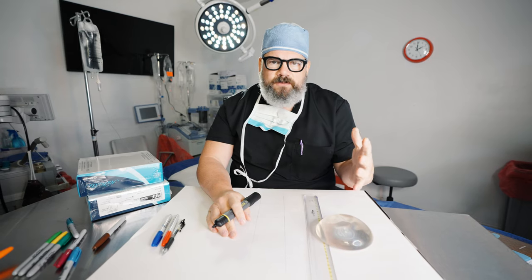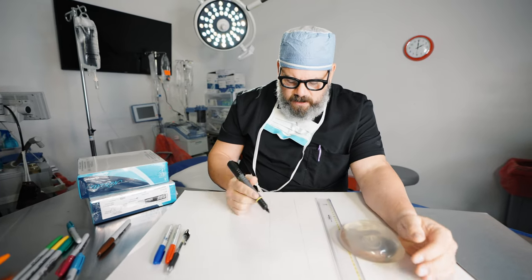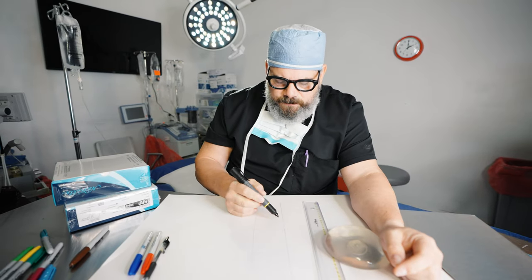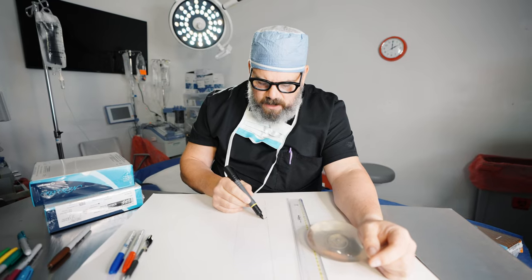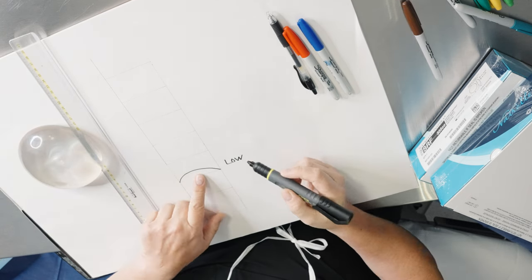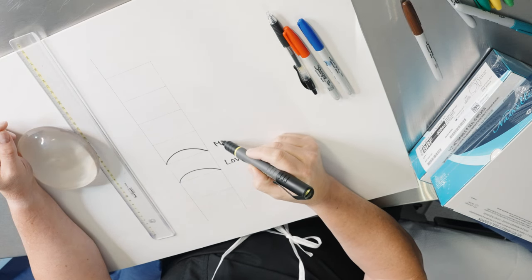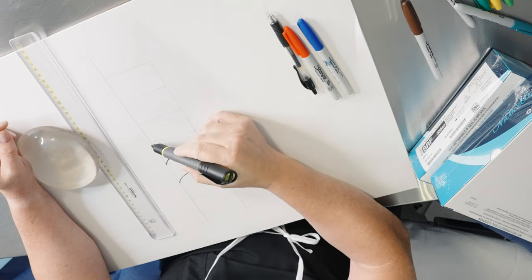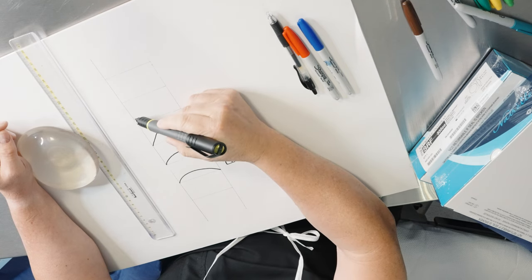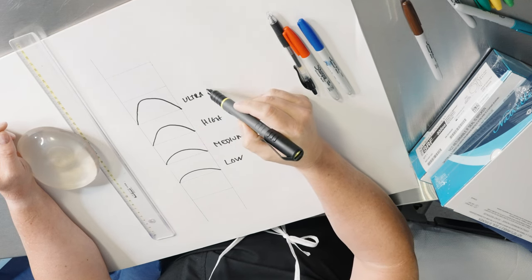Different manufacturers have different names for things, but in general terms there are a few different styles. If you look at an implant ladder here: a low implant will be this shape, a medium implant will have a different shape, a high profile will have a different shape, and then there are some called ultra high profile.